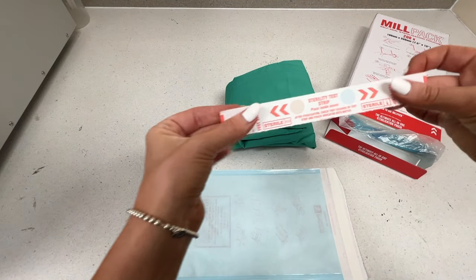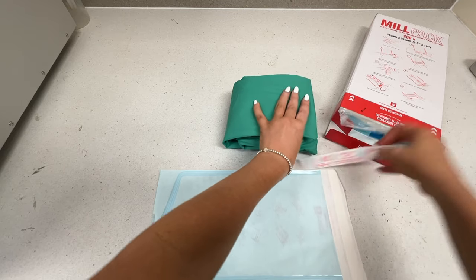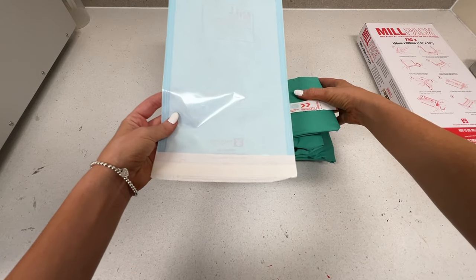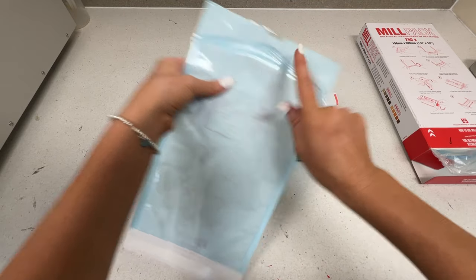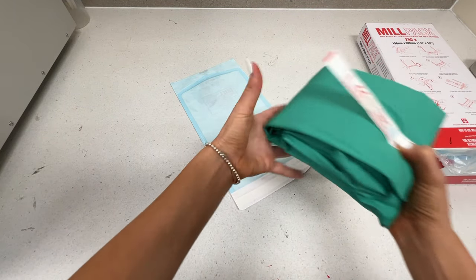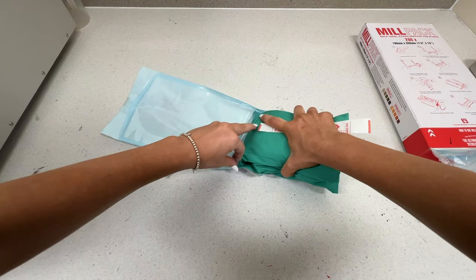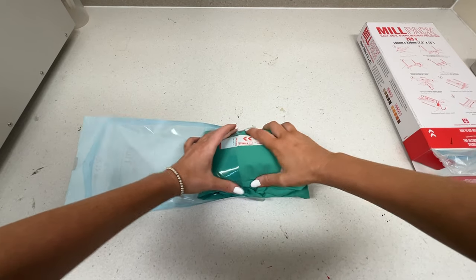This is the Milpac autoclave bag. It comes with a sterility strip that you can attach into your kit, and when you open your kit it will indicate whether it has been sterilized properly — super useful in clinic, especially if you've got an older autoclave or you just want to check that it is sterilizing your instruments properly. The bag is going to open at this end in surgery, so you need to insert the kit into the bag with the closed end going in first so that the surgeon can just grab that section. If the wrong end comes out first it increases the risk of dropping an instrument or the whole kit. So we want the closed end to go in first with the sterility strip.